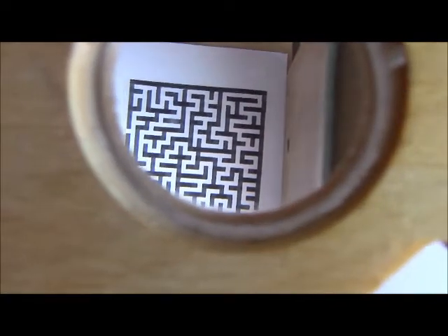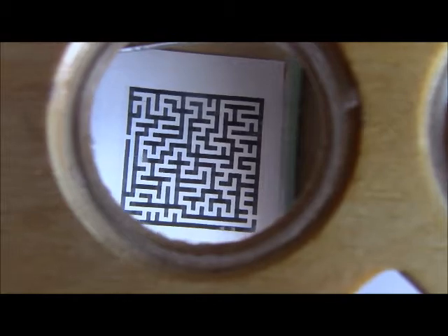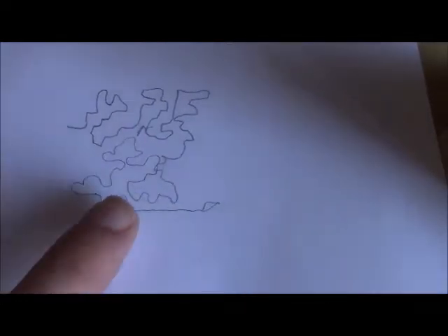You need to fixate on details, and then refixate and refixate, and it still has to make sense. Everything has to make sense. I'm getting pretty good at this, as you can see.